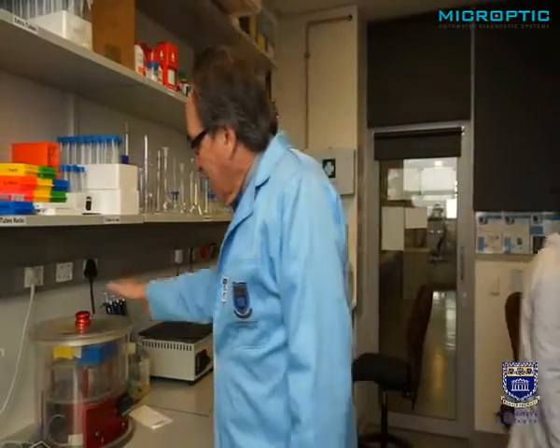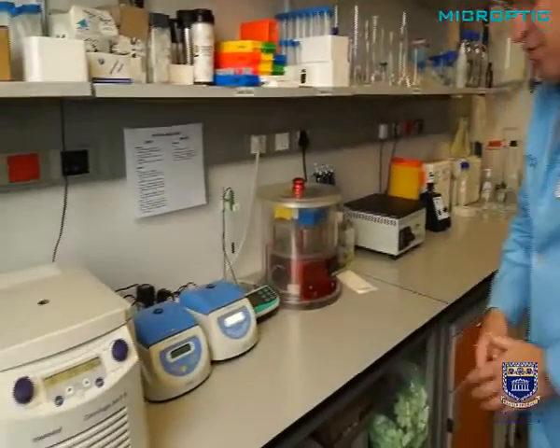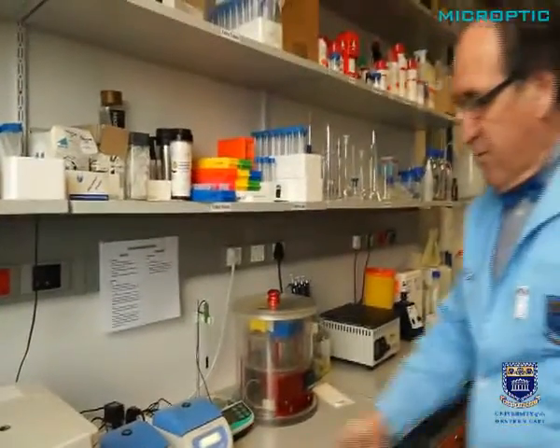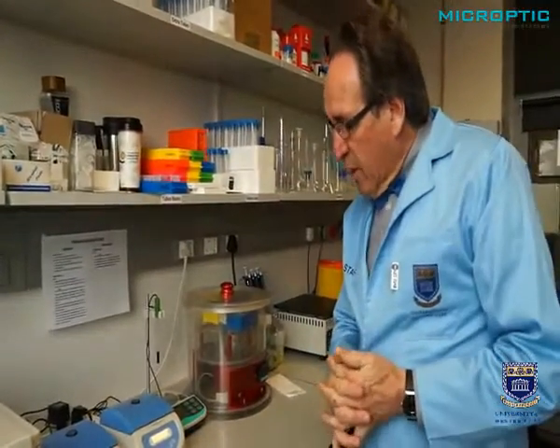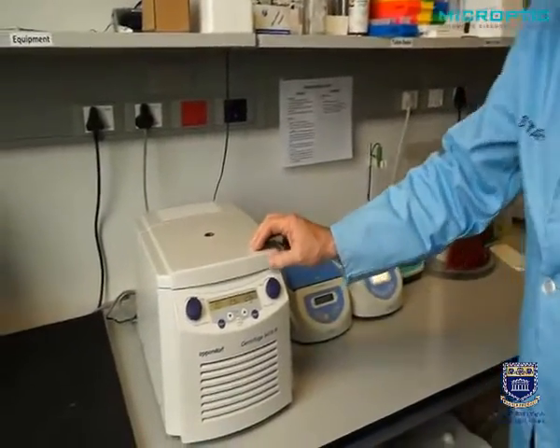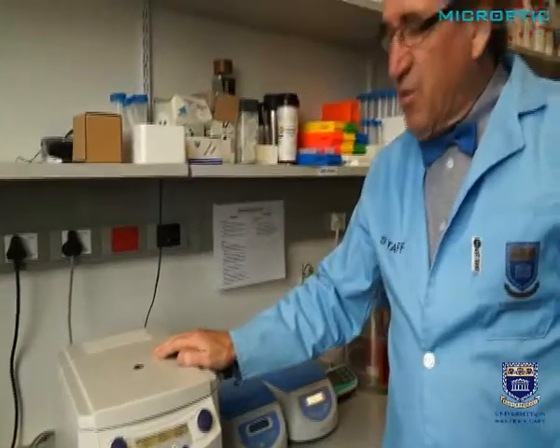While we are focusing near these temperature controllers, we also have very special centrifuges. Often it is important to wash your sperm and to slightly centrifuge. We have these that can do all the required speeds. And here we have a very special one which works between 4 degrees centigrade and about 50 degrees centigrade. In other words, if you do long-term centrifugation, it means that you can actually keep your sperm sample at that same temperature.